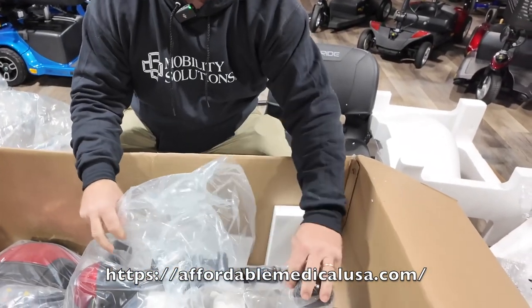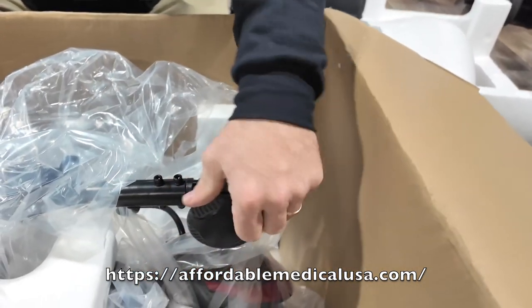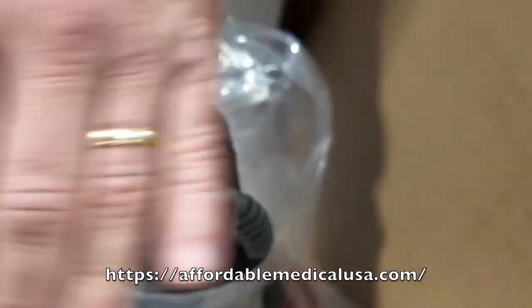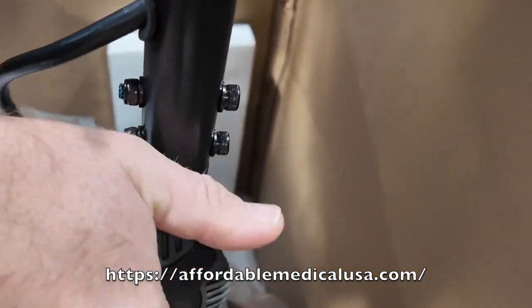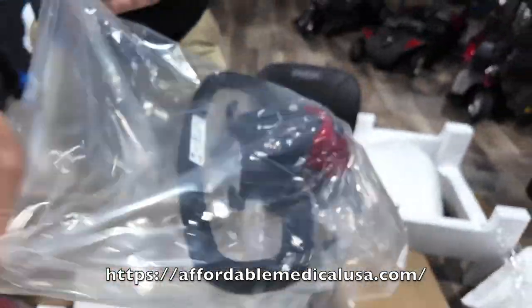From here, get the wrapper out of the way and loosen this up. Don't over-loosen it — just loosen it enough so the teeth don't grind. Then bring it straight up, and tighten it back down so the teeth go back in.